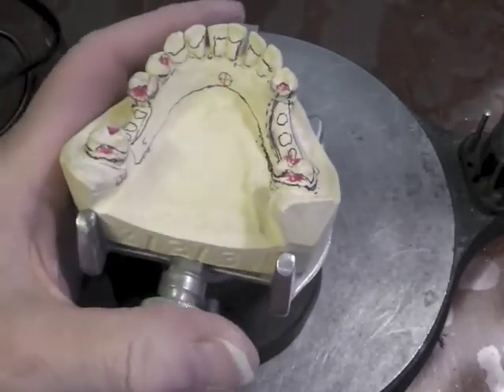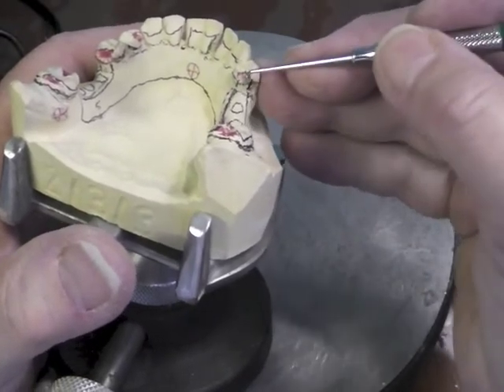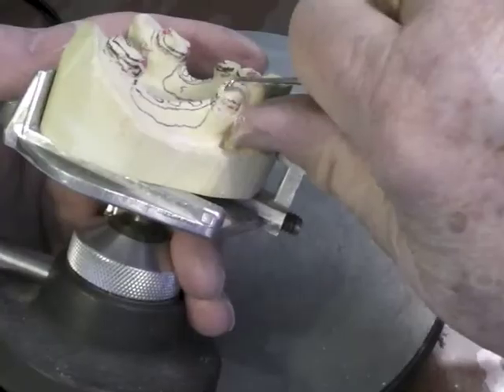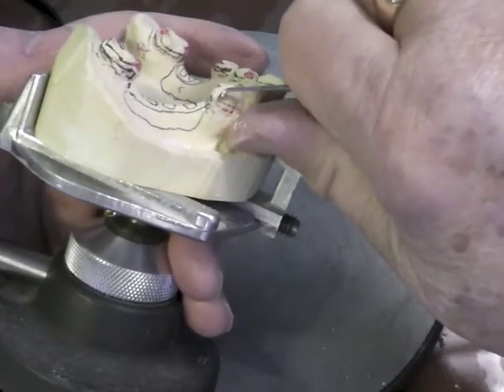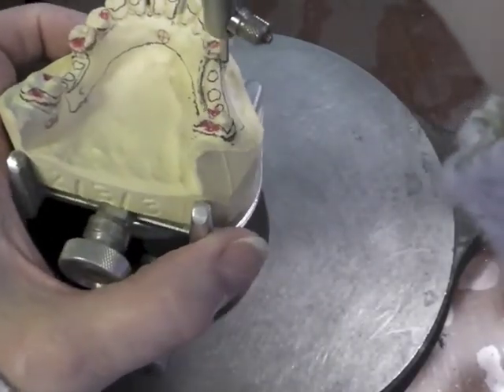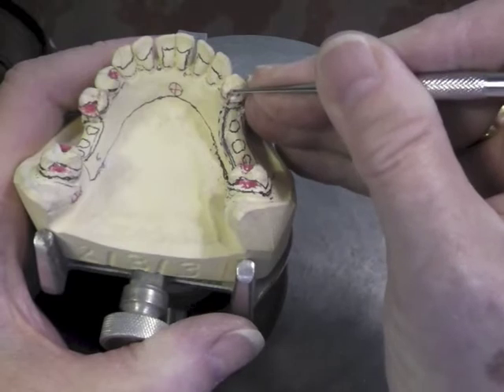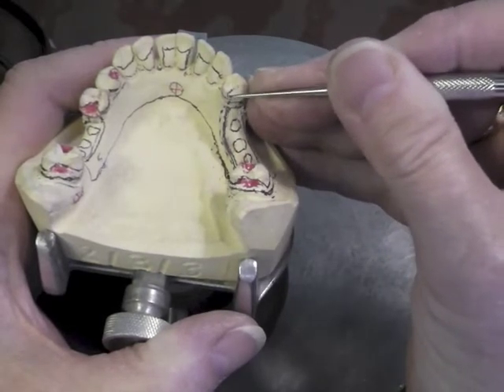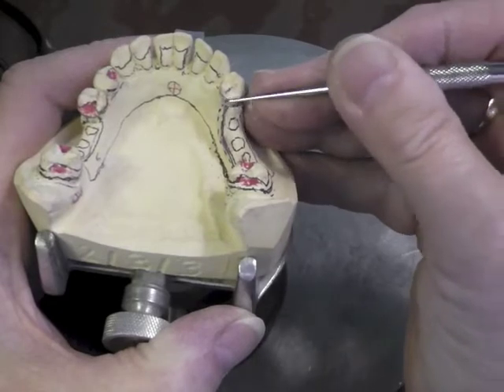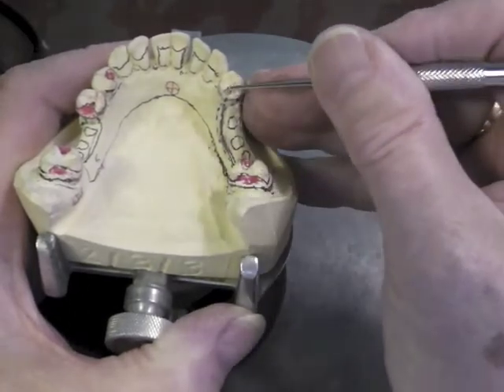One more clasp assembly to go. The guiding plate — I think we already prepared it right in this area. I'm going to bring my survey line down a little bit lower right here so that the first half can be above the survey line. We'll see what we did by re-surveying — okay, that's better. Lower the marginal ridge a millimeter. Spoon-shaped, sluiceway coming toward the buccal and kind of toward the lingual too. And then the fossa being deeper than the marginal ridge.